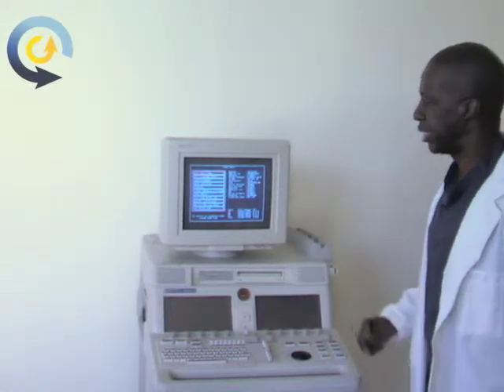At that point, the system will go into an exchange between the actual scanning modality and the diagnostic modality. It takes about 30 seconds or so, and as we come into the screen, we'll be able to see that it's switching over. We can hear the clicking, all of that is normal, and in about 15 seconds or so, you'll see that the diagnostic screen has come up.